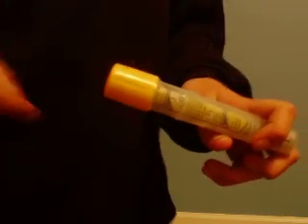So your normal EpiPen — this is a double pack, there's two of them. I'm just going to use this one for the demonstration. It will look like this. You've got your plastic tubing here and a yellow cap that just holds it until you need to use it.